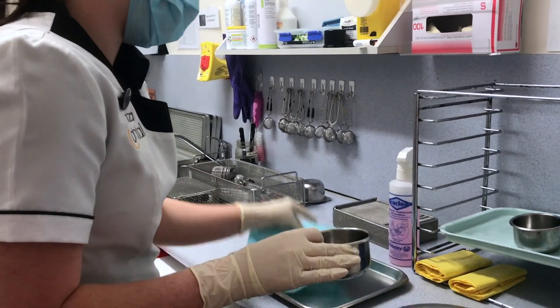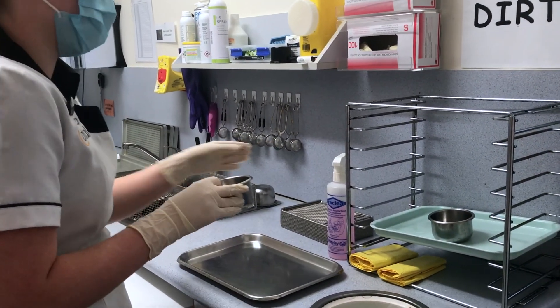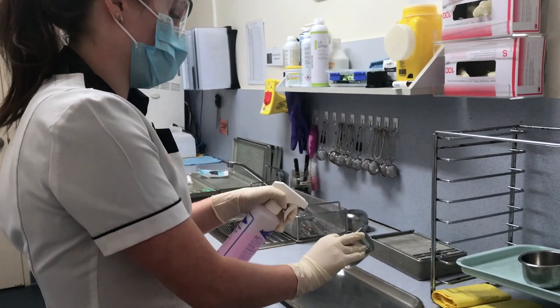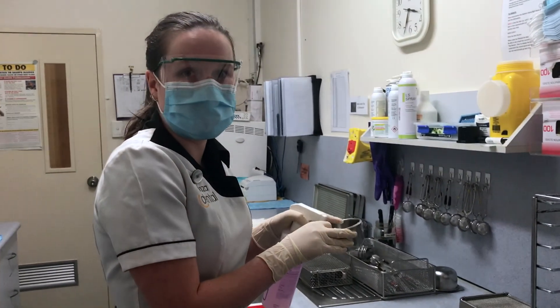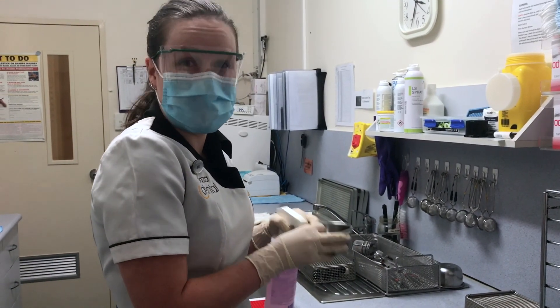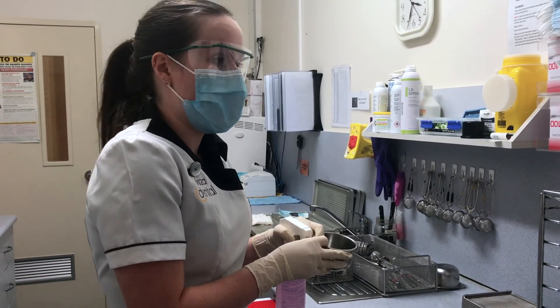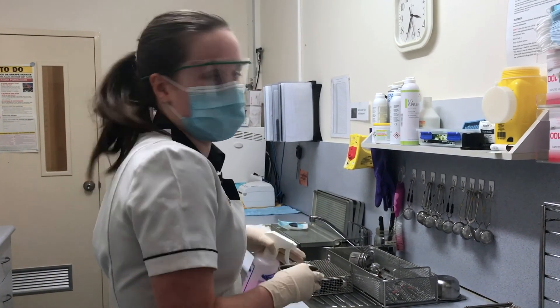Do we need to scrub any soiled instruments with blood, composite resin, or filling materials? You shouldn't need to with the thermal disinfectant. Everything regarding composite should be removed in the surgeries, chairside. And in regards to blood and that kind of contamination, it's removed in the dishwasher.